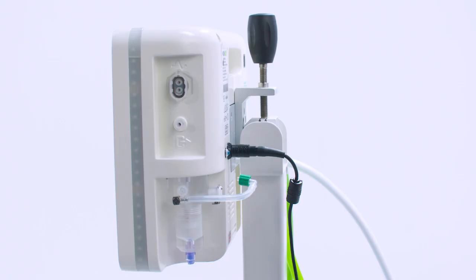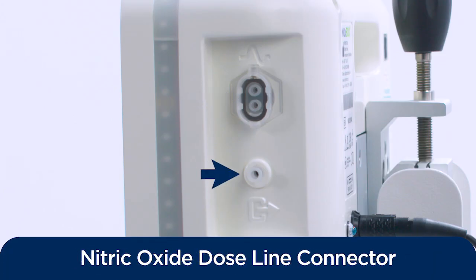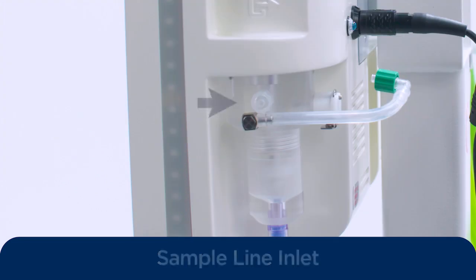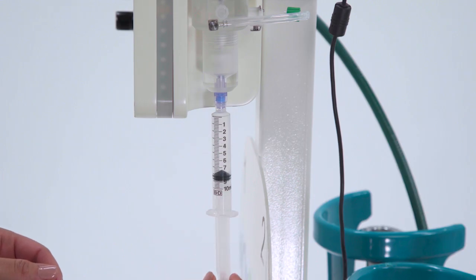The NOxBOXi device is attached to the breathing circuit with connections on the side, including the NOx flow sensor line, the nitric oxide gas dose line, and the sample line coming from the patient. There's also a water trap bowl to collect condensation, which must be emptied after use.